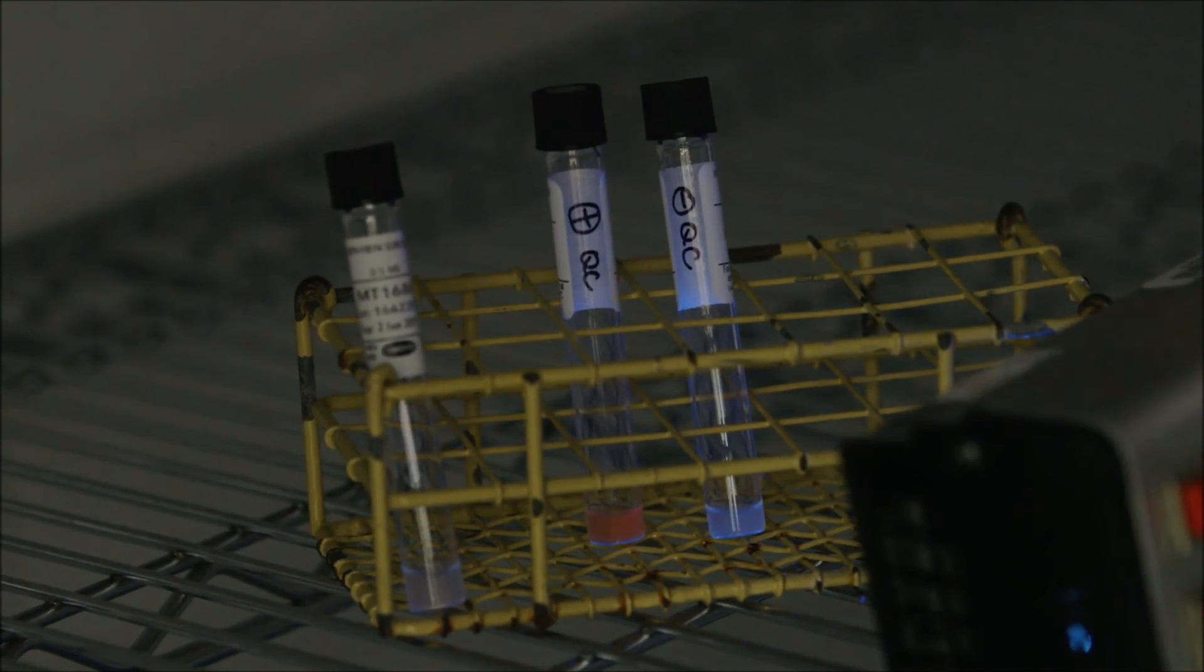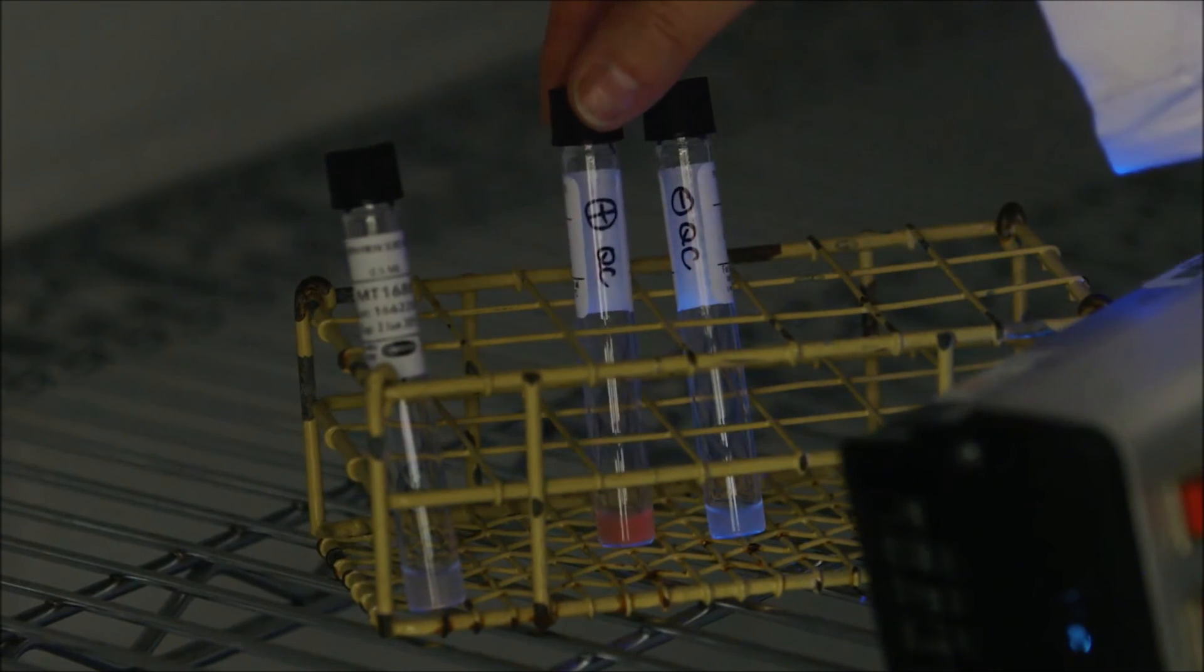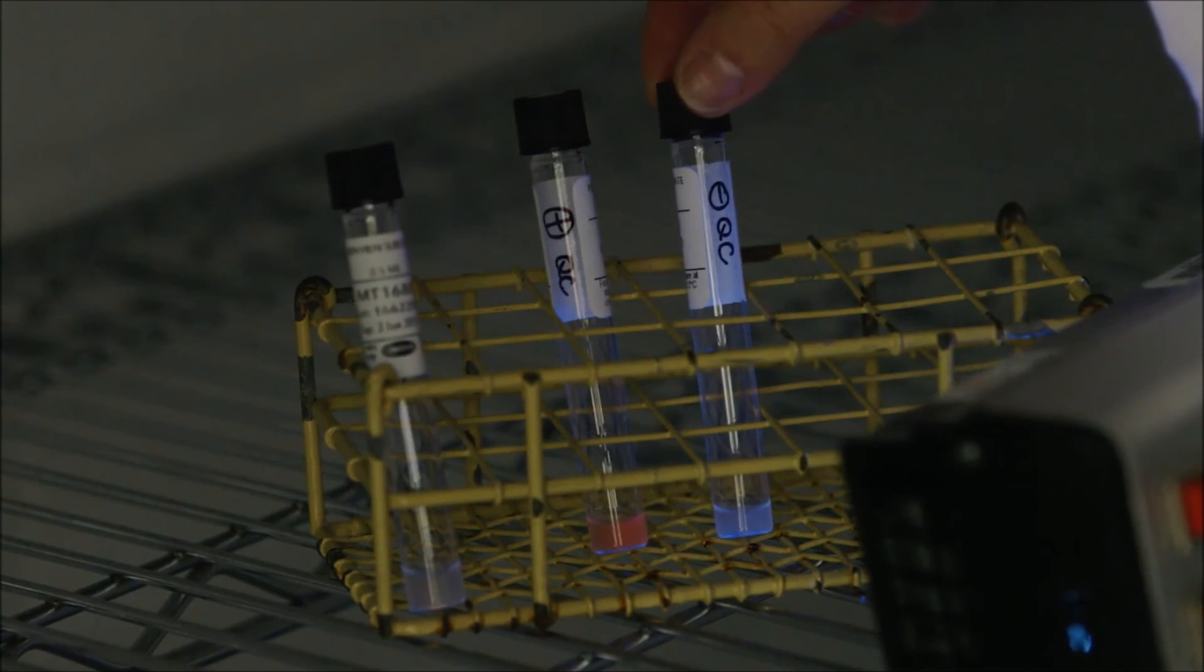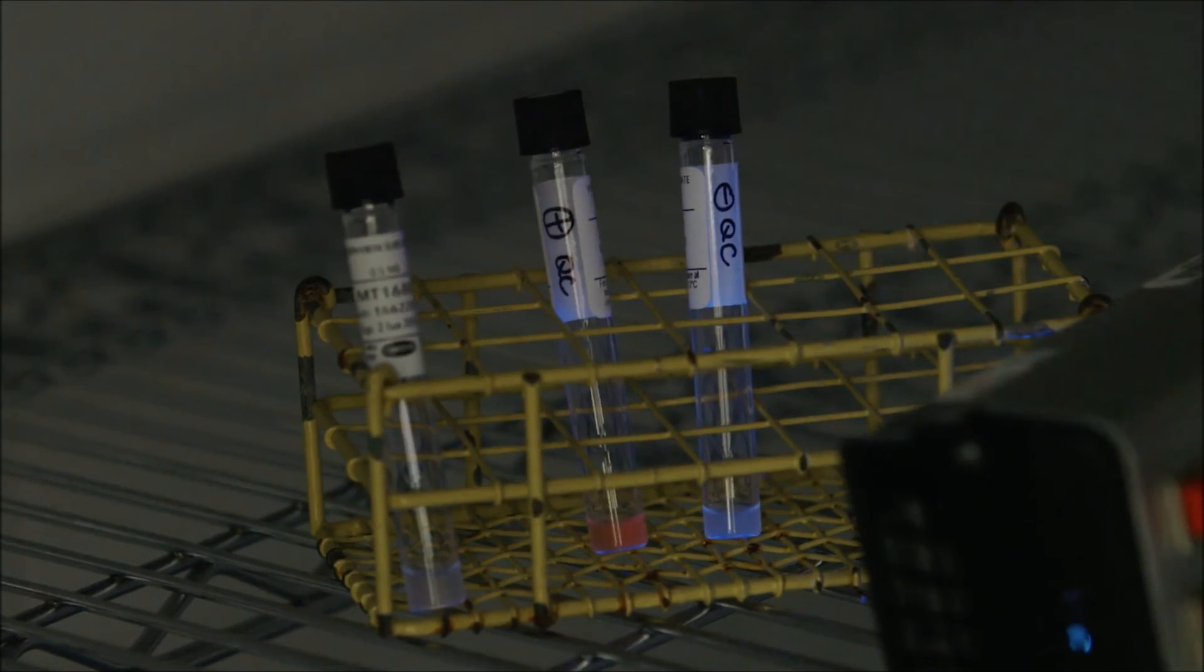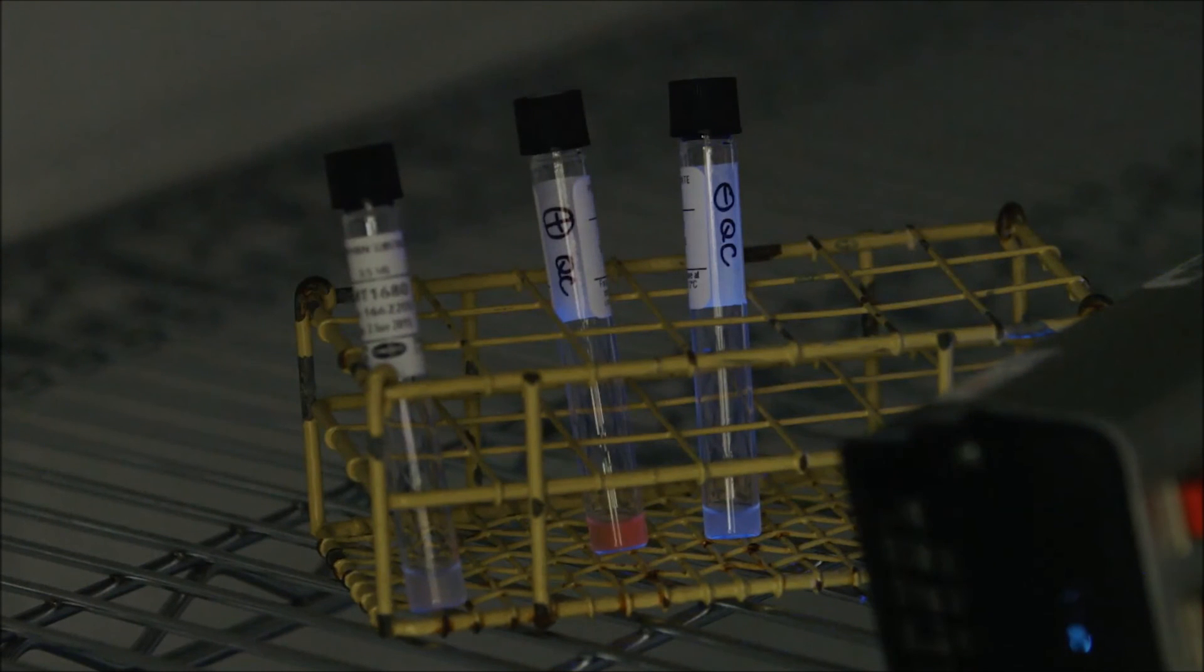And you'll see that the QC positive is fluorescing a nice pink color. However, the QC negative is unchanged. My unknown porphyrin is also unchanged.